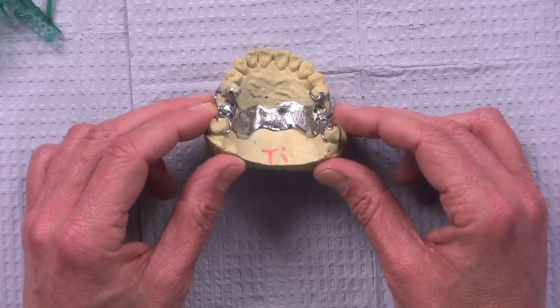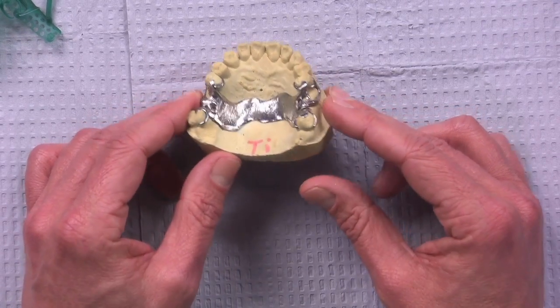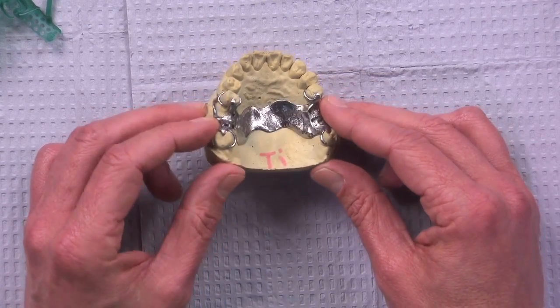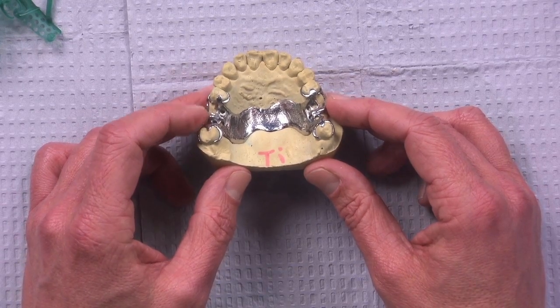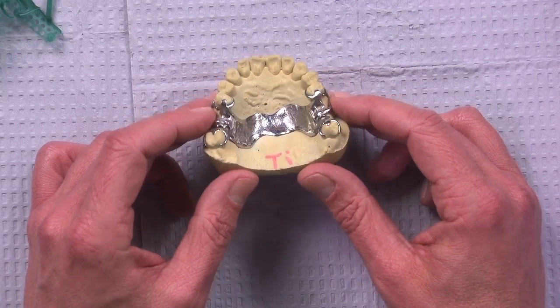And we're not sure exactly what eliminating the waxing, the old way of doing it, does, but it does seem to improve the metallurgy. We're just not sure why. We just know it's actually happening. So you might say, well, why would I ever want any kind of titanium-based partial? And the demand's not super high for a product like this, but it is great for the patient that thinks they have metal allergies or actually has a metal allergy.